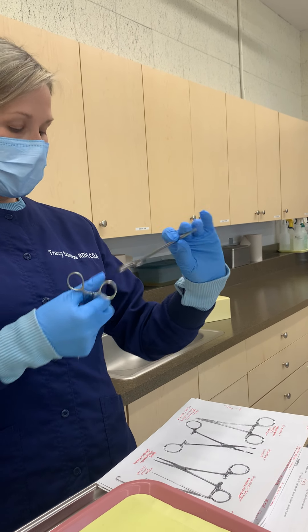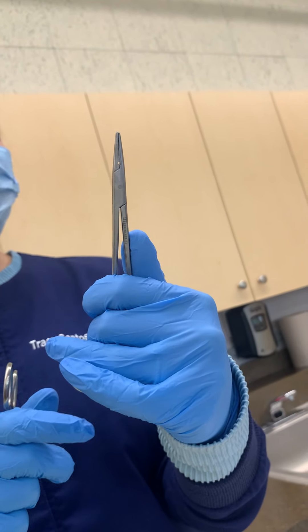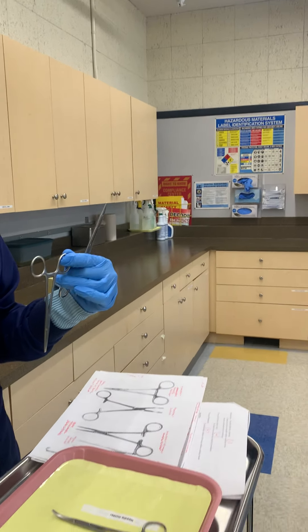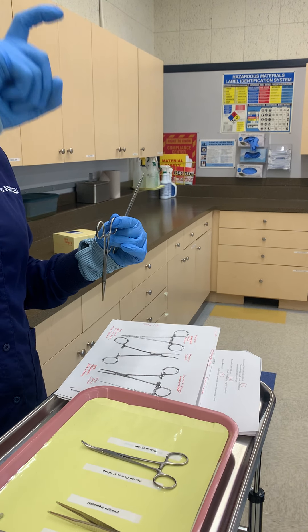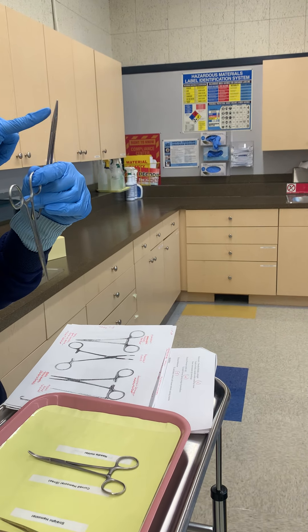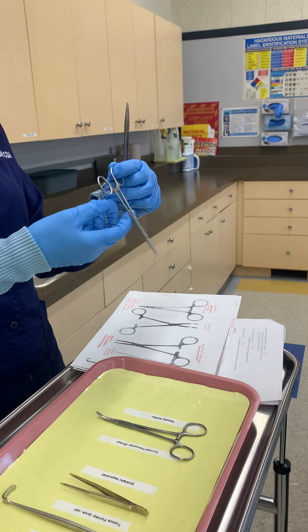Second, it has a notch in the beak, which I'll come around and show you. That notch is specifically there to hold the needle. Suture needles are not like anesthetic needles — suture needles are almost like a C-shape, because they need to go in and be able to come out. So it will be held in this needle holder. That notching is one of the big differences.